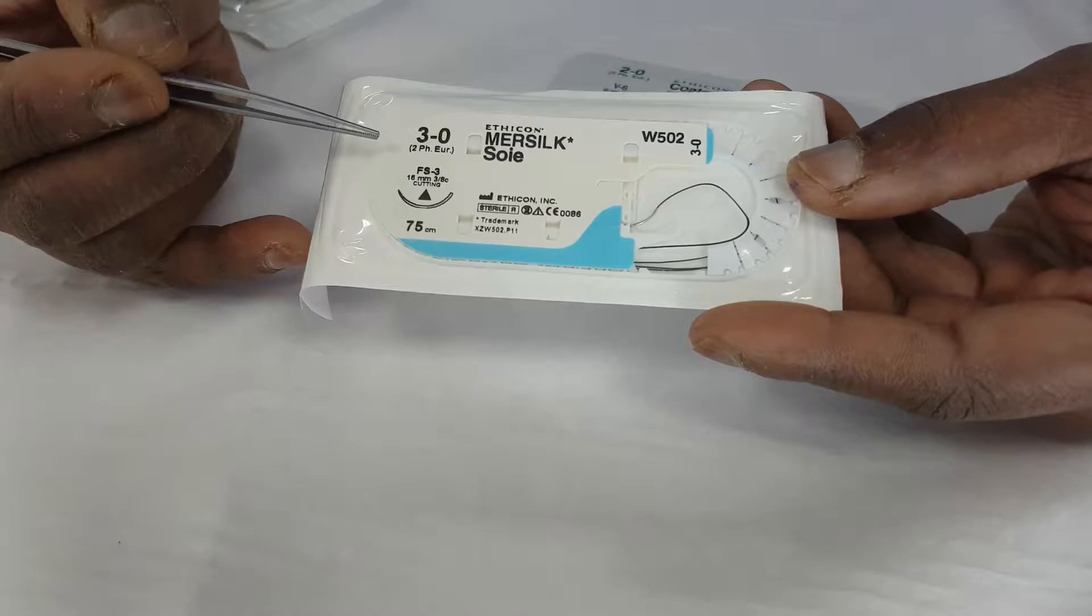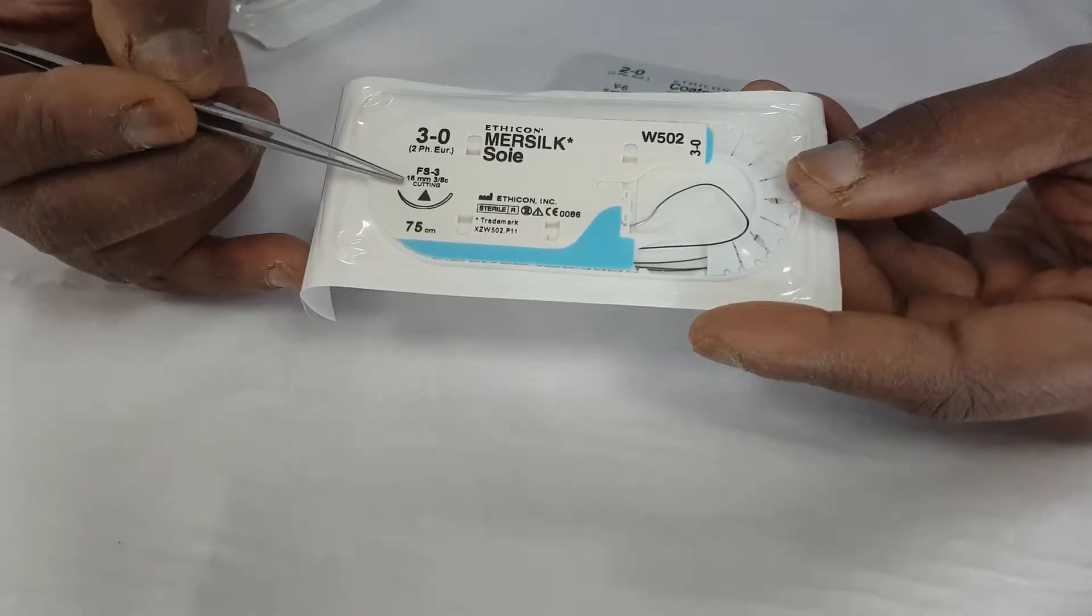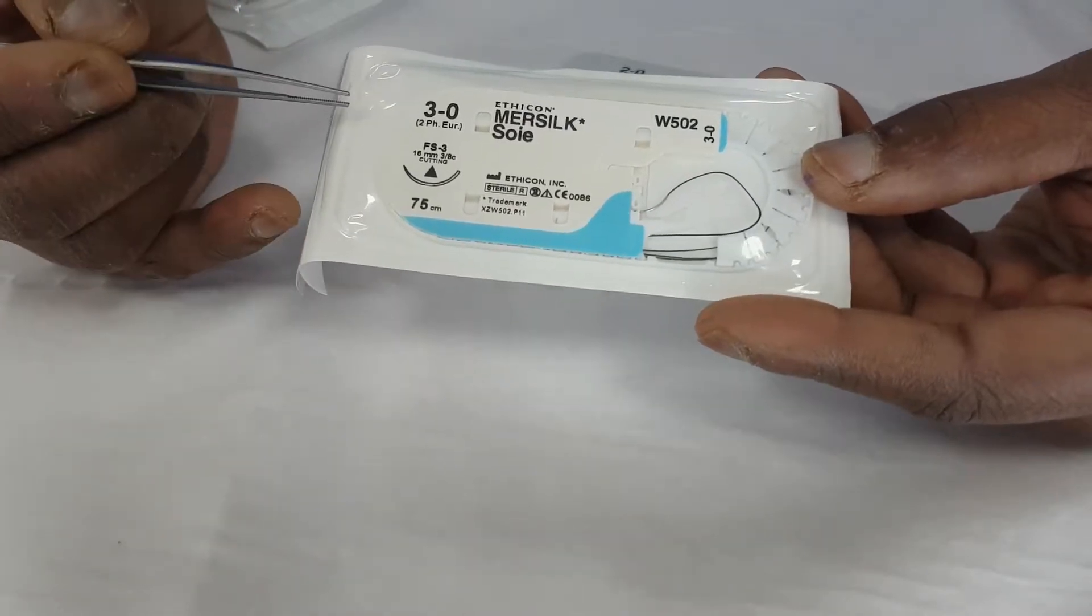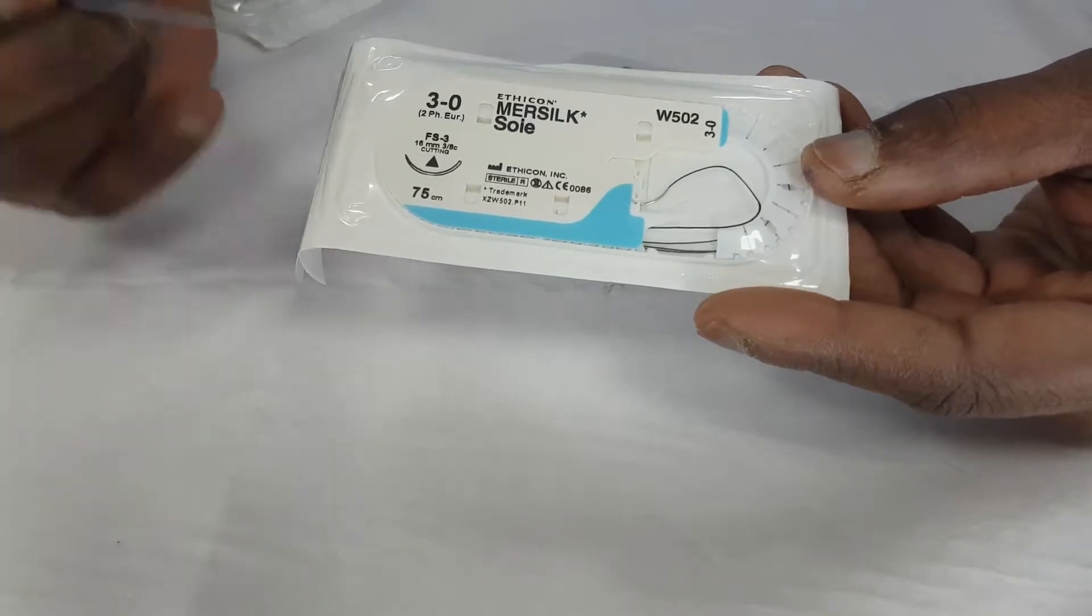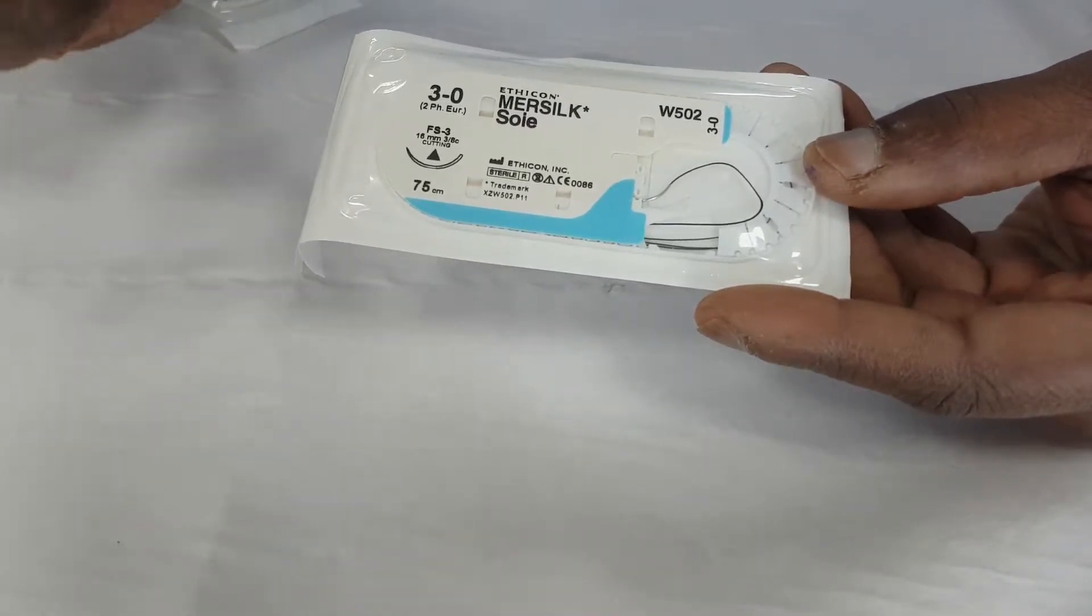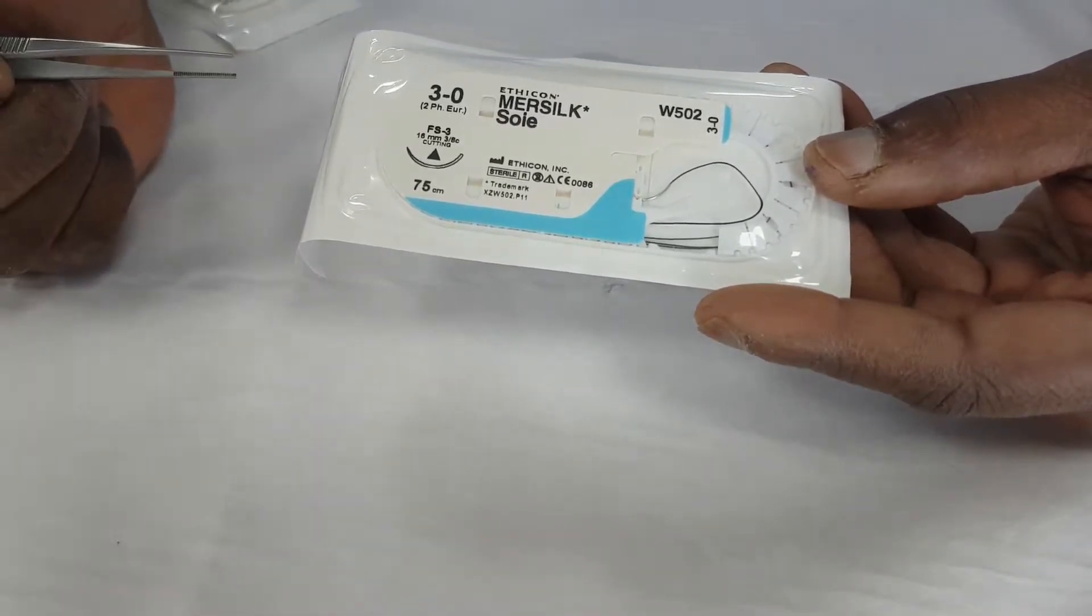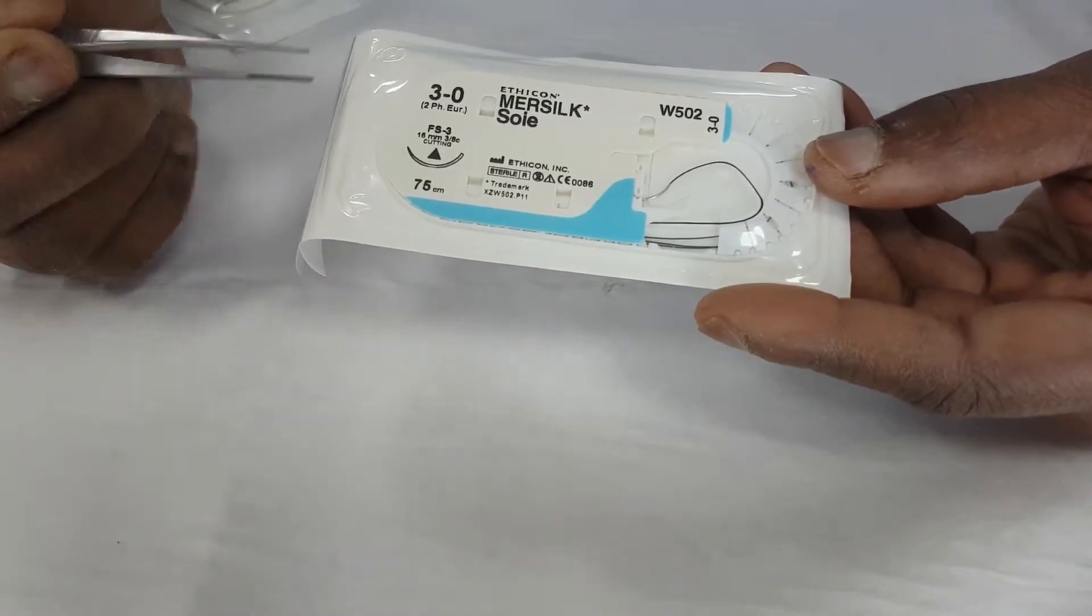And this is a cutting needle, and it's a needle that will cut on all three surfaces. So this is a great needle to use on skin, any hard surface that you're trying to get through.